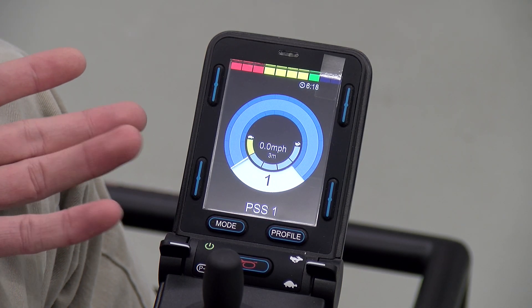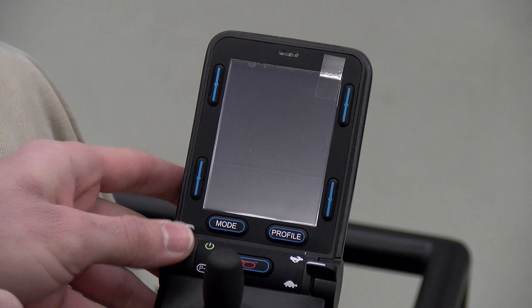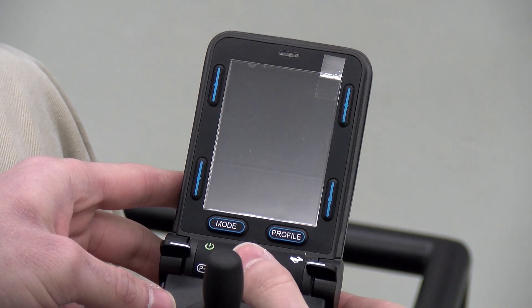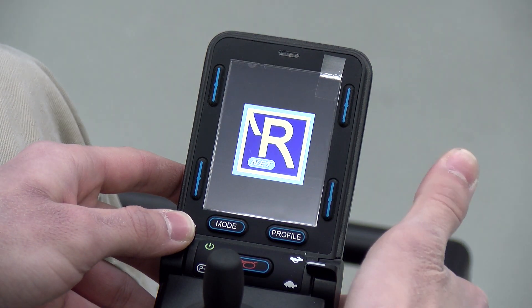With the joystick powered off, you're going to want to hold down the horn button while pushing the power lever forward. You will hear the initial startup beep and then right after that you will hear a secondary beep. When you hear this, let go of the horn button. You will hear a third beep and that's when you want to release the power button, and then it should start up into the onboard programming.